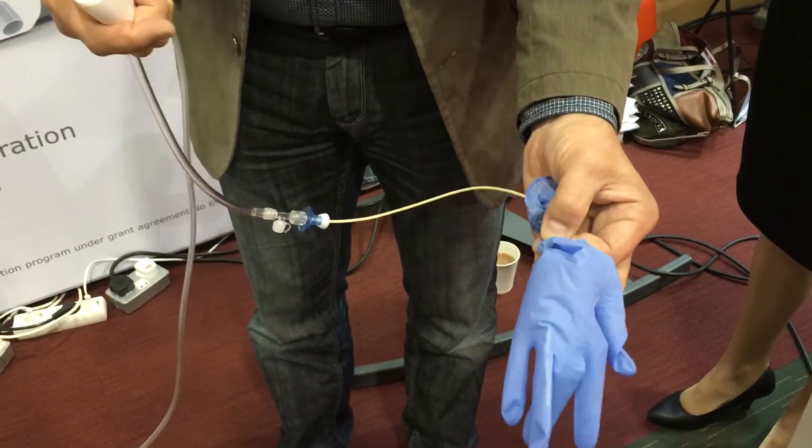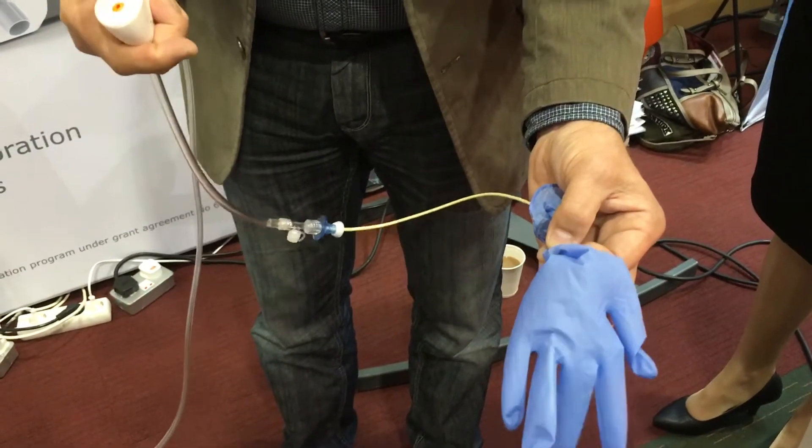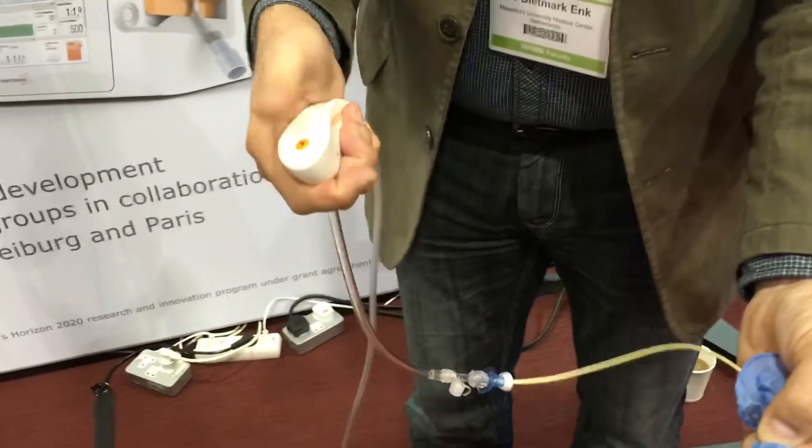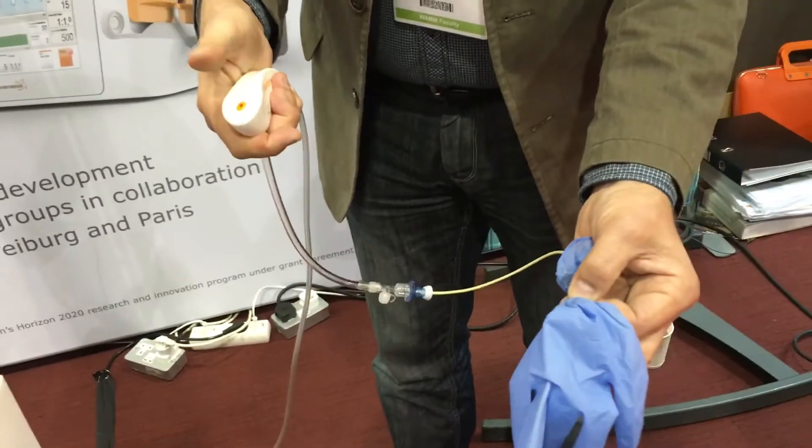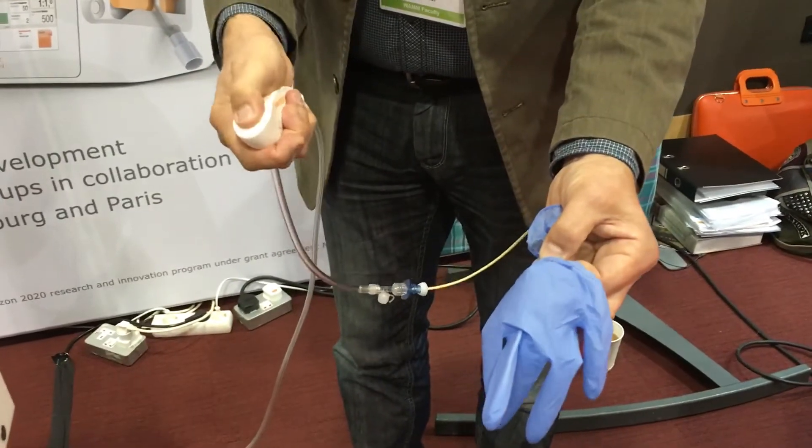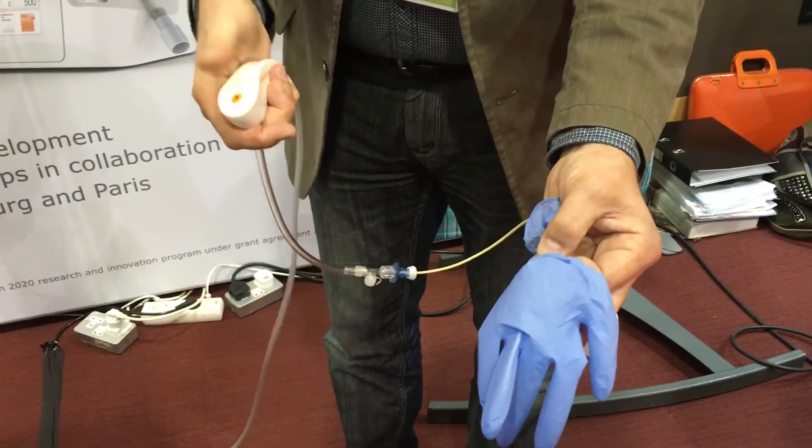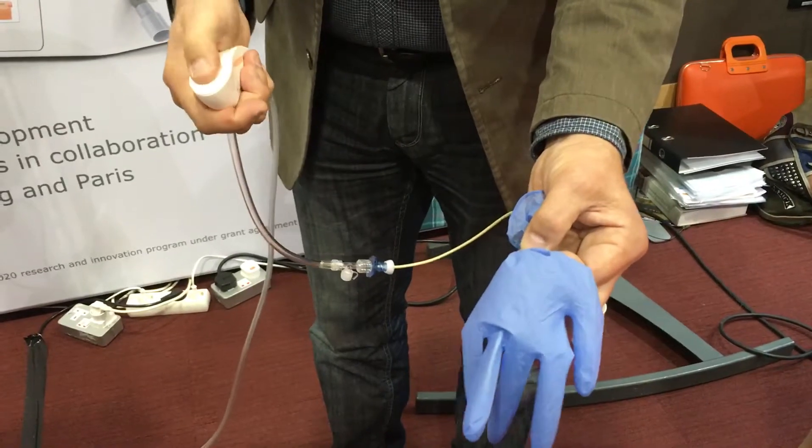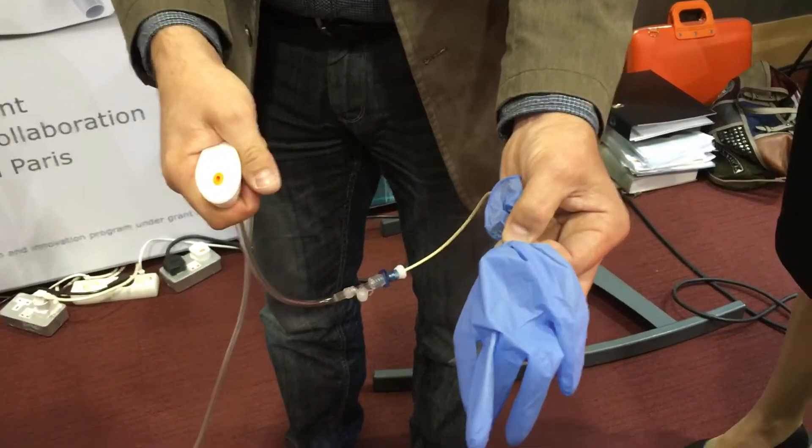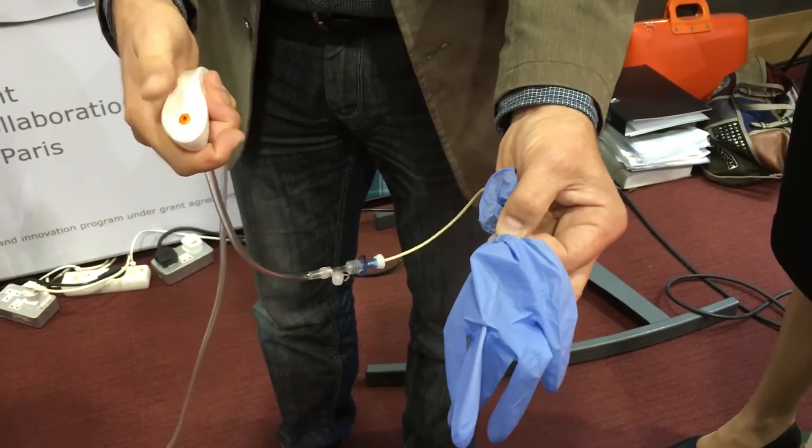And if you overinflate slightly like this, you can easily bring back the volume to a reasonable amount by a little bit more aspirating. Again, overinflating like this, and now actively desinflating and then starting again.